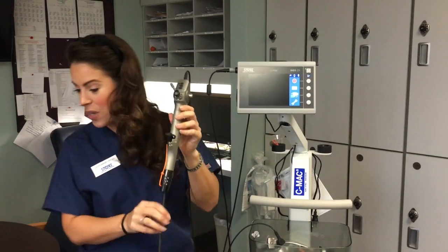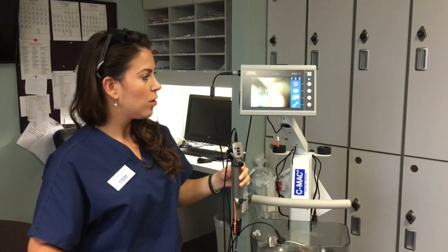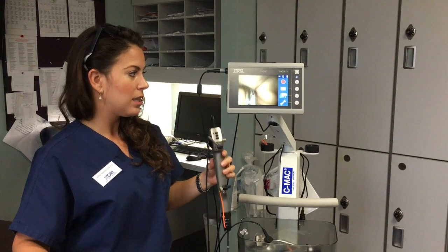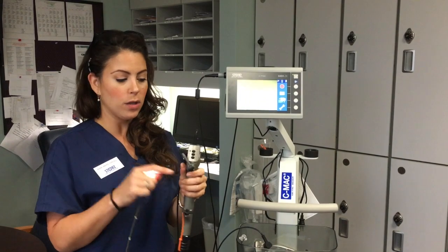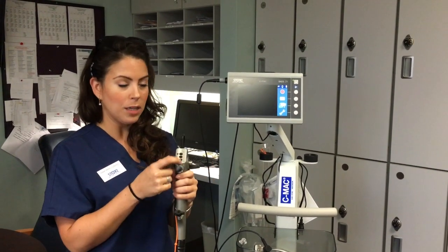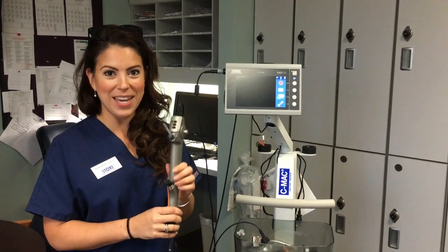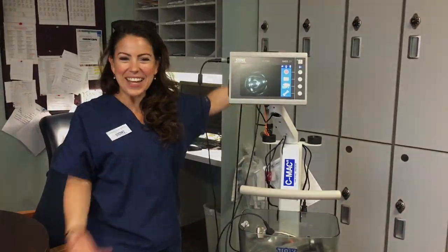With the flexible scope, you can slide an ET tube up and go ahead and intubate with great visualization. This scope is reusable. There's a suction port at the top, and you can also attach oxygen to blow debris out of the way. There's also a working port, and you can take pictures and videos here as well. That's your CMAC platform.